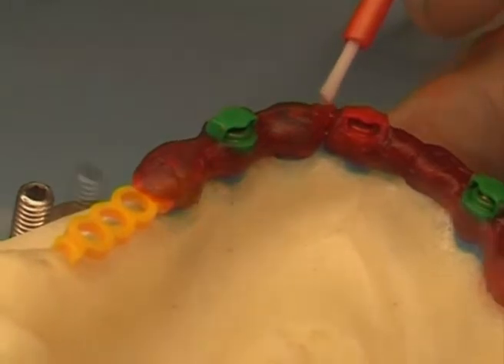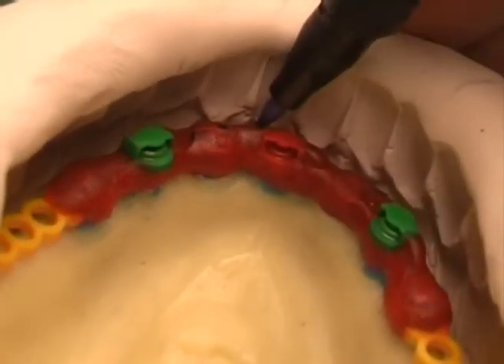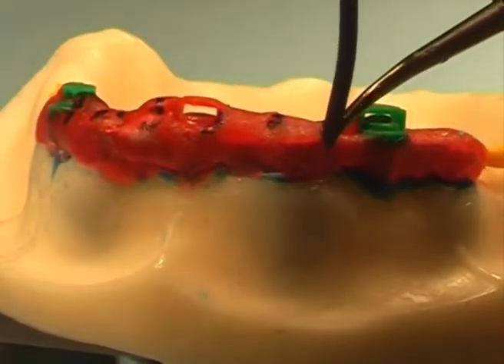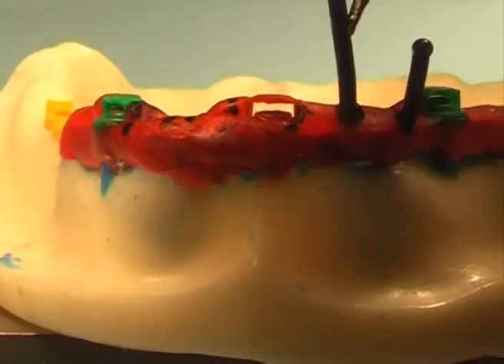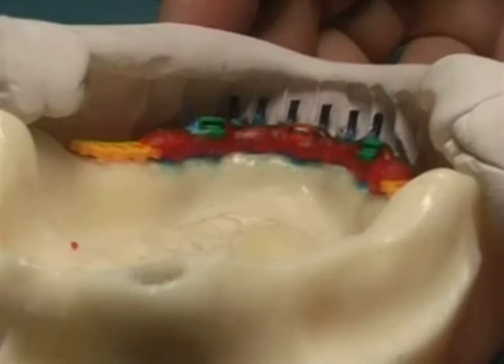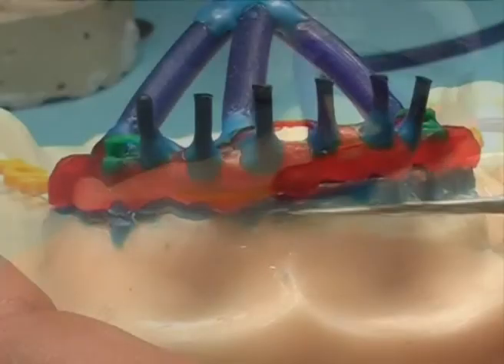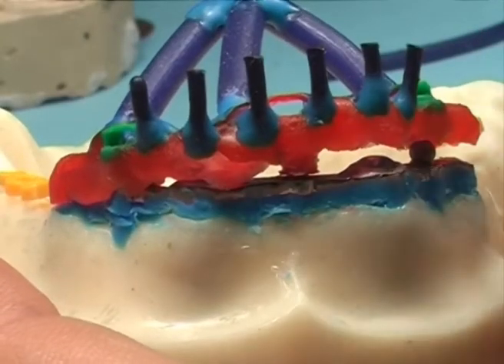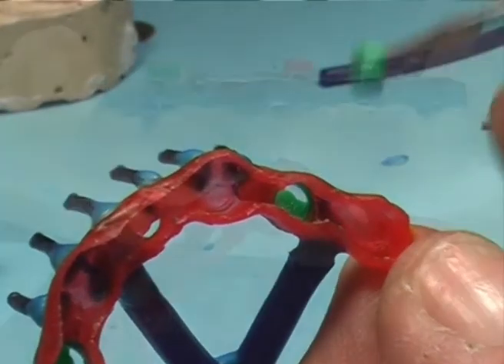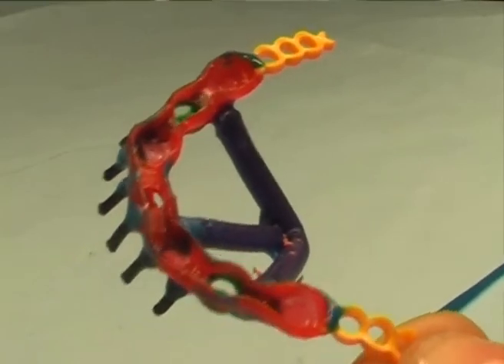This procedure avoids risks of retractions. Using trial mask, position reinforcement pins for anterior teeth, taking care of the available spaces. Screw the structure. Remove it from the model, being sure the positional rings remain steady on the model over the spheres and do not follow inside the overstructure to be investment filled before casting. Refine any excess resin using a burr and smooth up surfaces if necessary with wax.